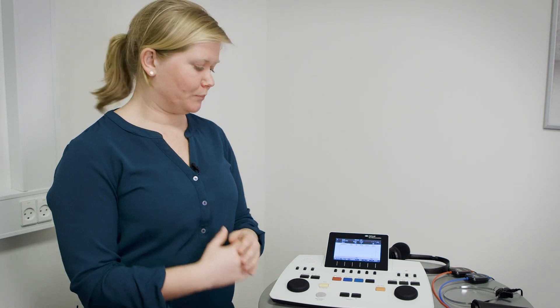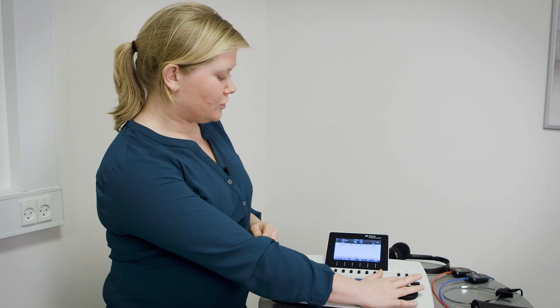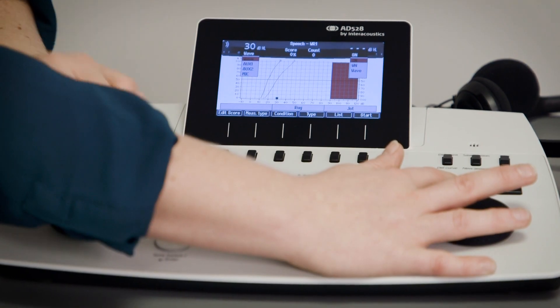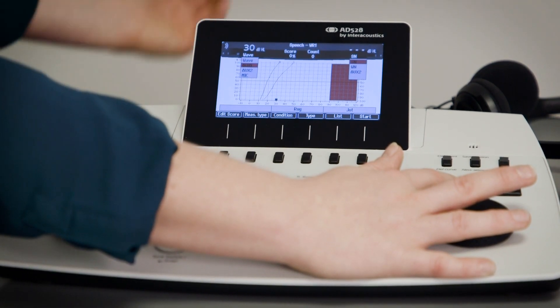On the device you can change between these modes: WAV file, microphone, and an external input to ensure that you may have some material recorded and some that may not be. You do so by long pressing on the speech test and two bars will then appear for channel 1 and channel 2 respectively.